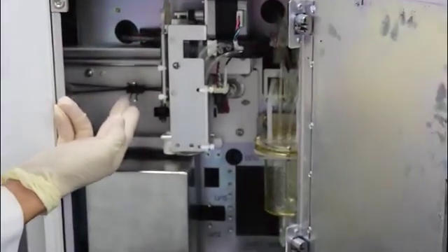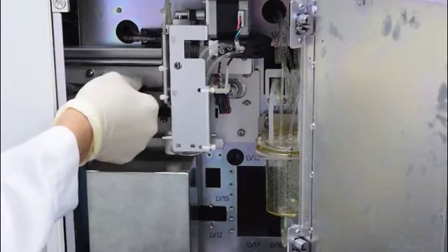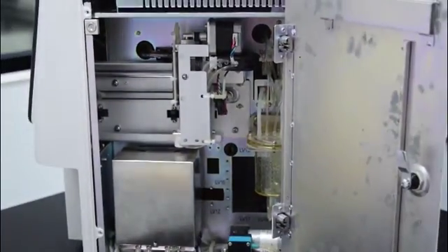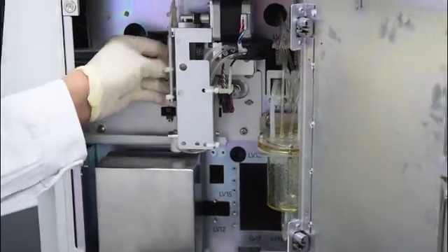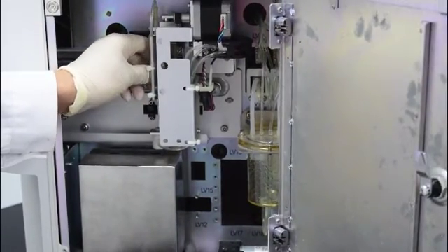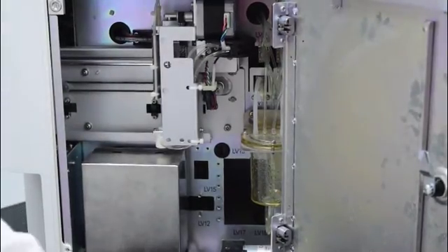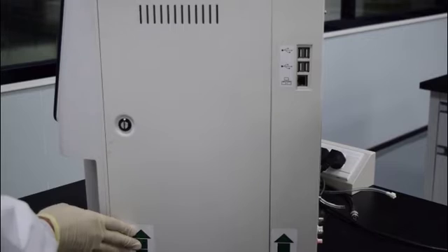There are two binder clips which are used to immobilize the conveyor belts. They must be removed before powering on the Analyza, both in horizontal direction and vertical direction. After taking them out, do not forget to lock the right door.